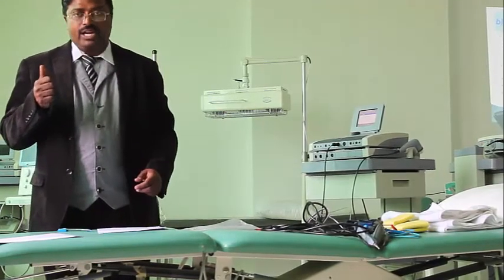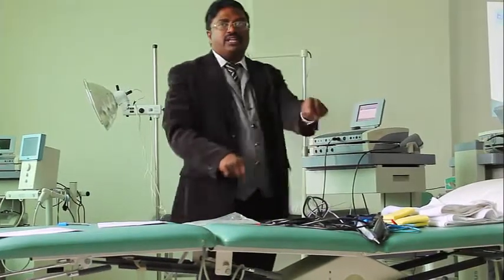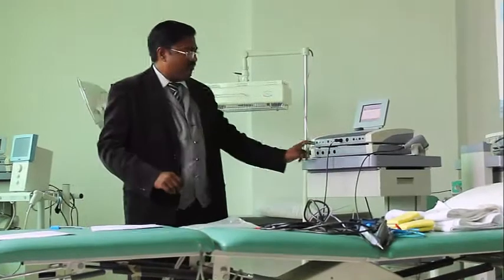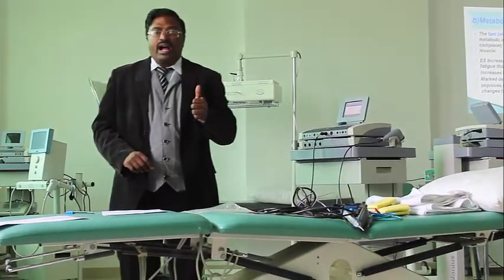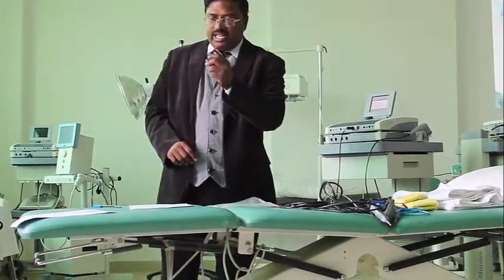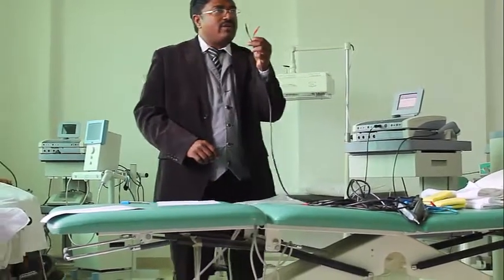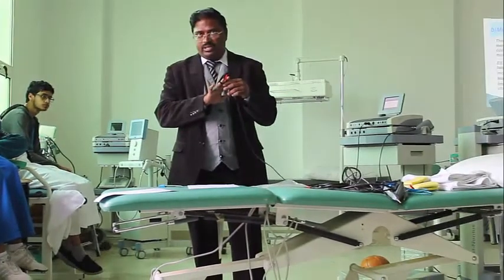Identification of various electrotherapy treatment materials. These materials, what is this, names of these materials, and some names of the areas here. Second, identification of anode and cathode. If you see, there are two things, black and red. So out of this, which is anode, which is cathode? What is anode, what is cathode? That's what we are going to see.